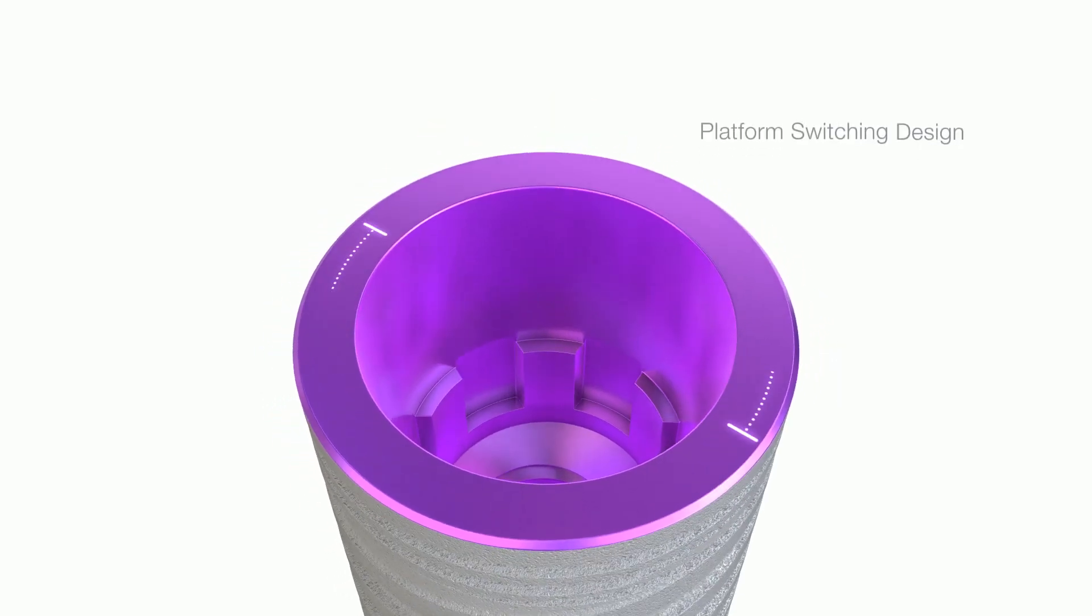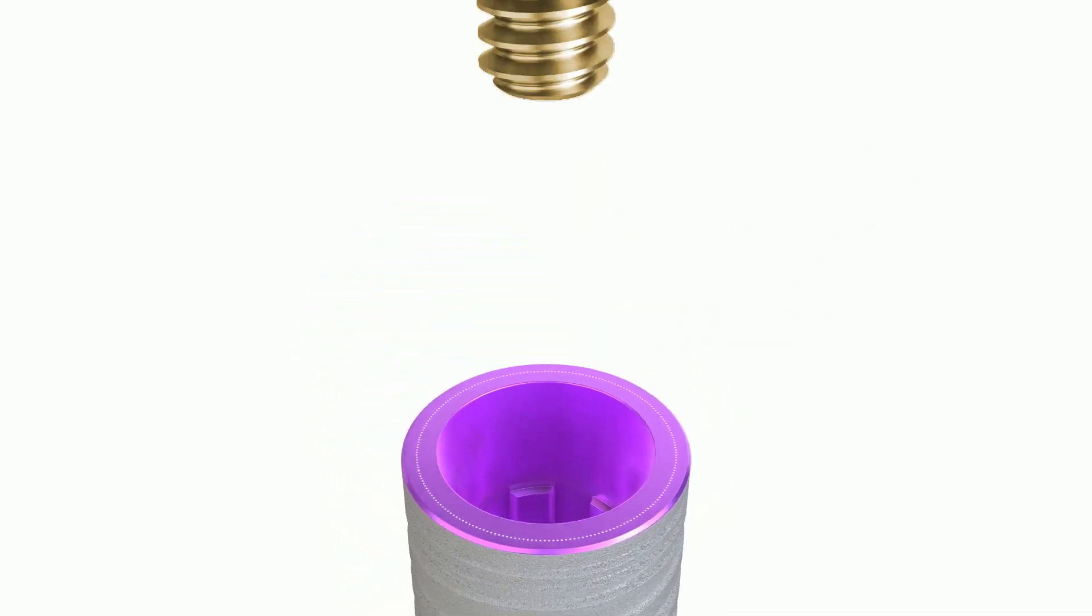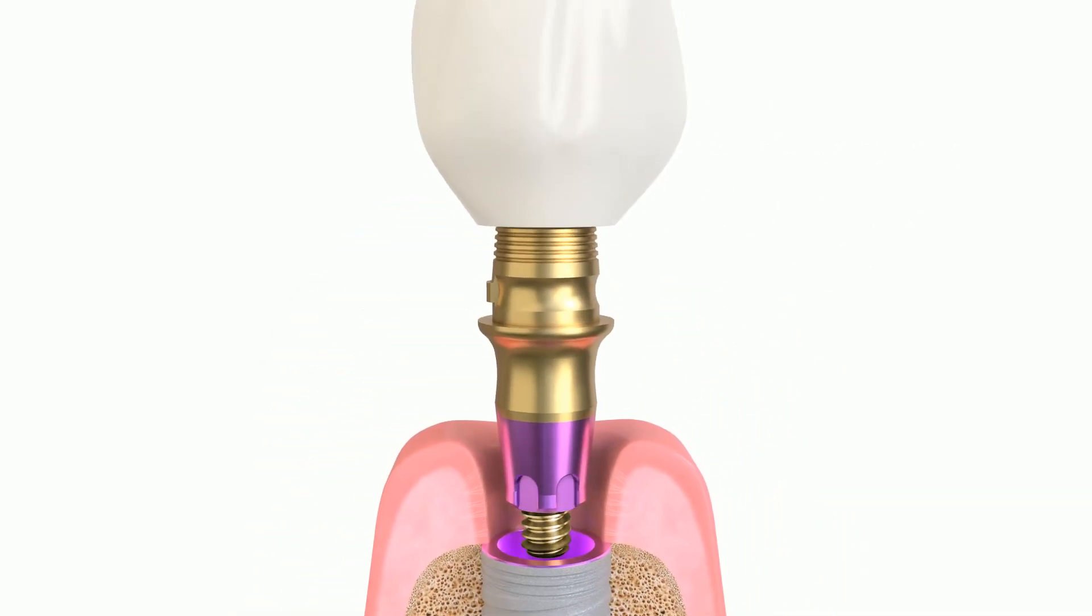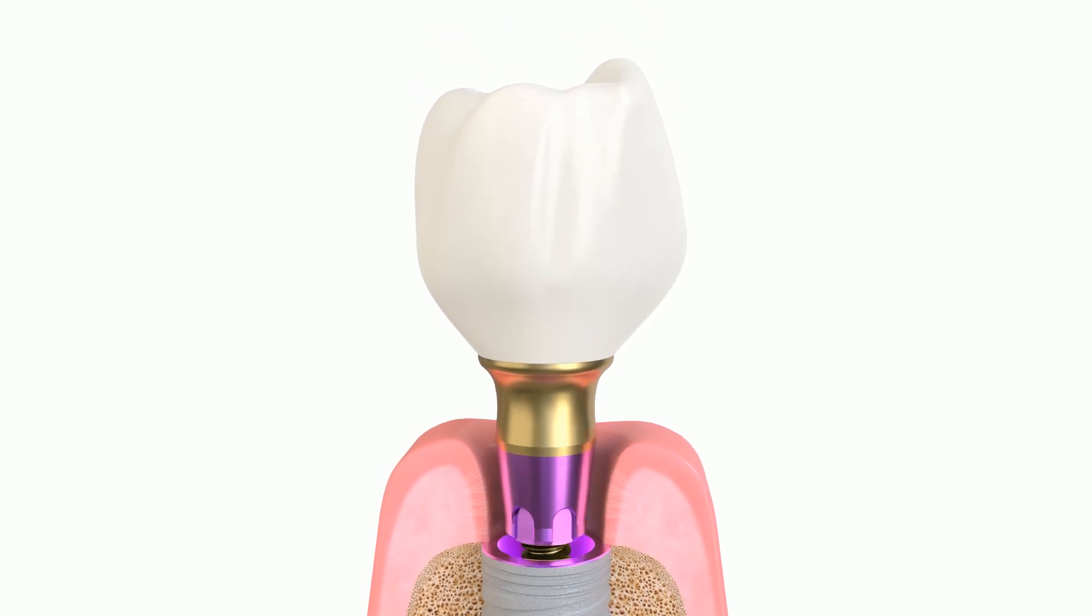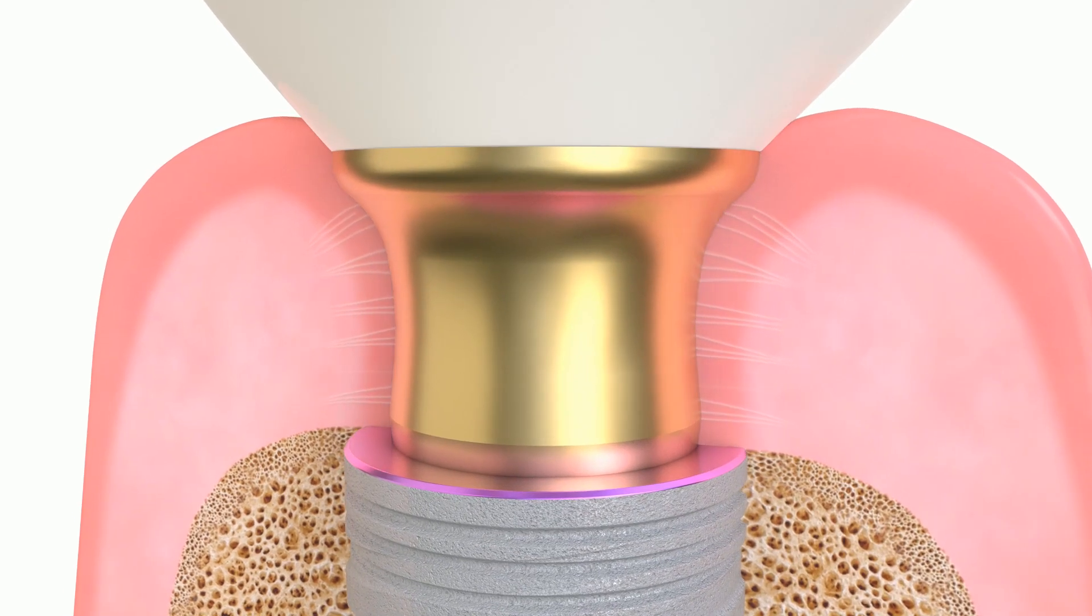C1 incorporates the platform switching concept, which was designed to facilitate soft tissue preservation and growth. Implants with a platform switched configuration have been shown to exhibit less bone loss when compared to non-platform switched implants.